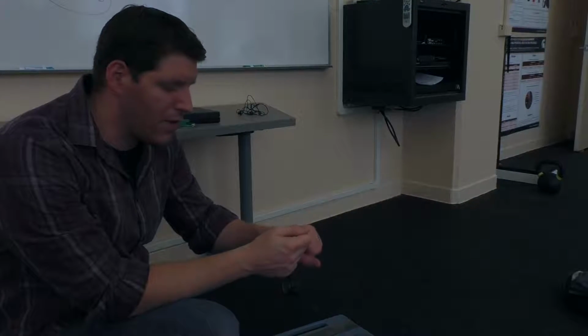Now, what I was trained on when I was younger, the original BIA devices looked like jumper cables. They didn't look anything like this. They would attach these jumper cables to you via some stick-on electrodes, and it would measure resistance and reactance, which you will actually see in the BIA equations on your data sheet. The BIA devices these days don't give you those numbers. They calculate it for you within the software, so you'll just get percent fat.